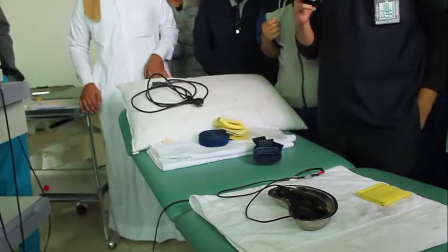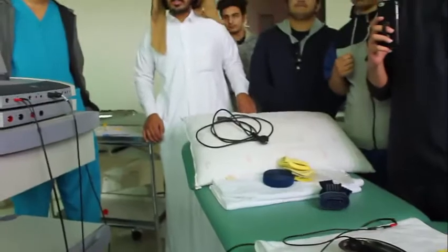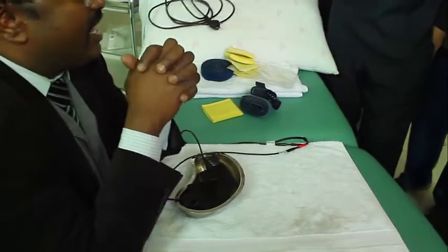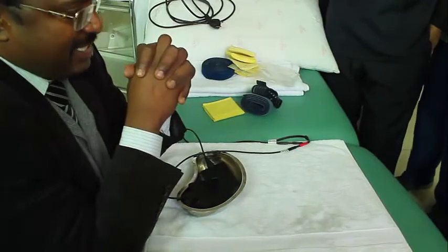Clear? So this is the second part of today's class: identification of cathode and anode. The first part was identification of different materials and their names. Now the third part. What is the third part? Self-testing. Before self-testing, I want to show you how to decrease skin resistance. Today we have four criteria. The next criteria is how to decrease skin resistance and why to decrease skin resistance.